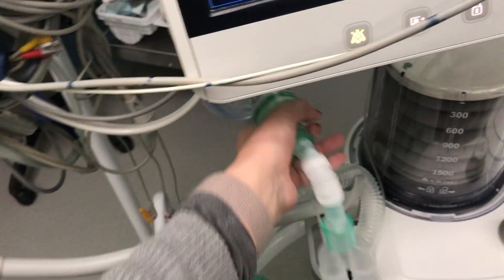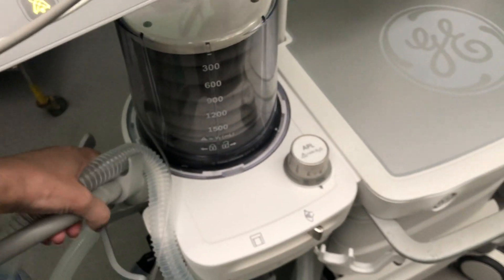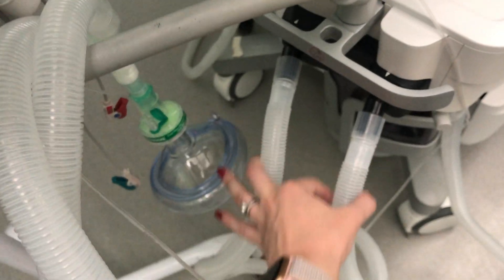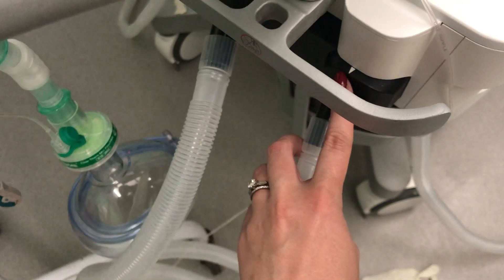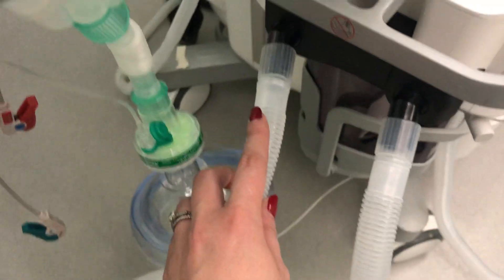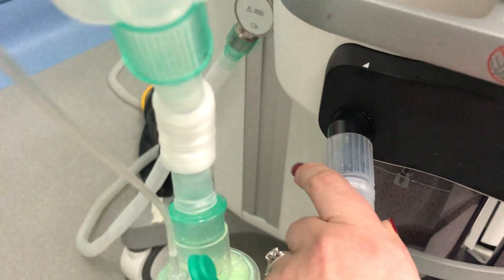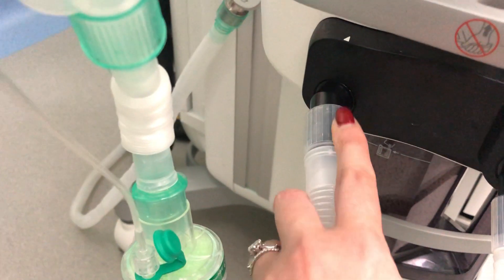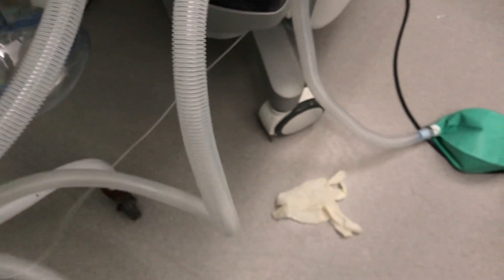The breathing circuit consists of two separate limbs. There is an inspiratory limb, indicated by an arrow pointing towards the patient, and an expiratory limb — the air expired by the patient going back into the machine. So two limbs make up the breathing circuit.